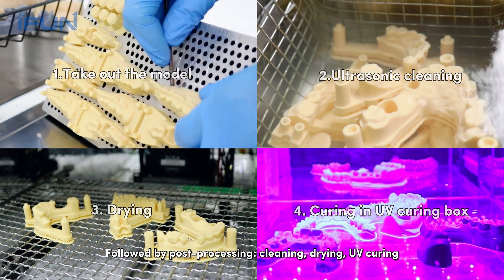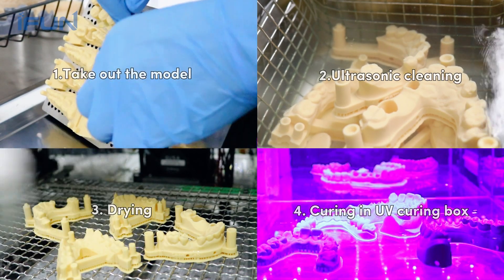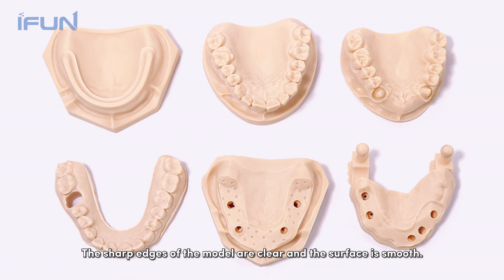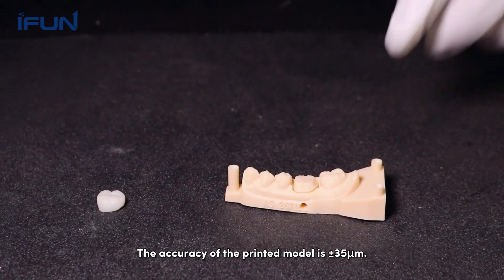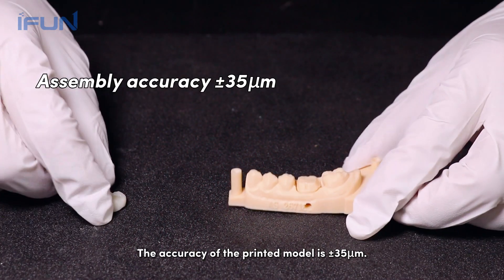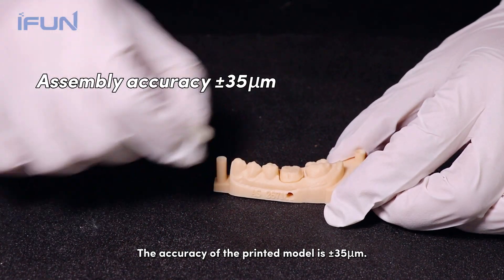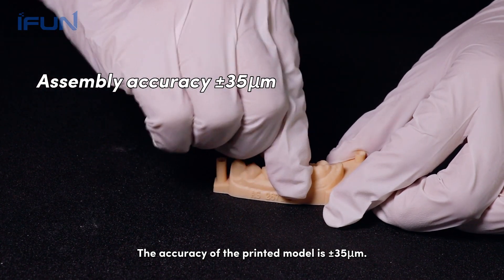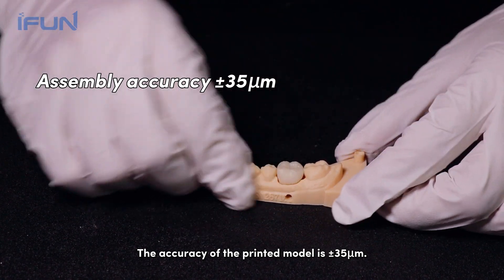After UV curing, the sharp edges of the model are clear and the surface is smooth. The accuracy of the printed model is plus or minus 35 micrometers.